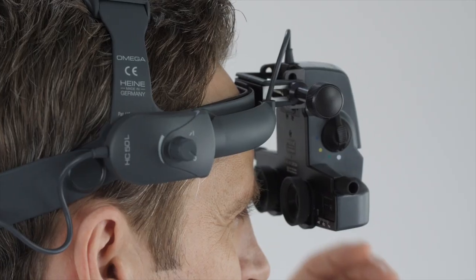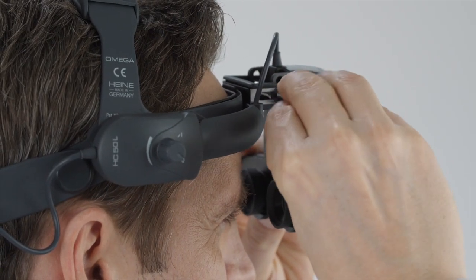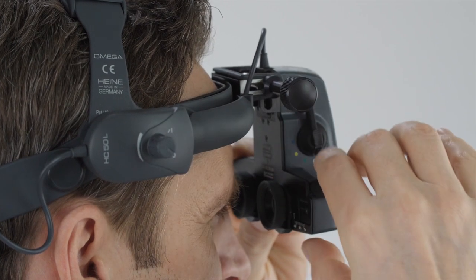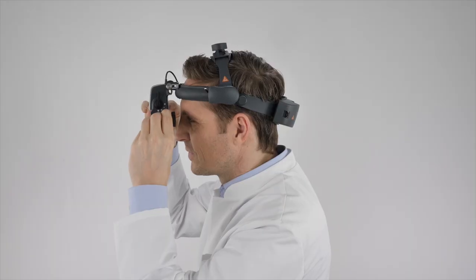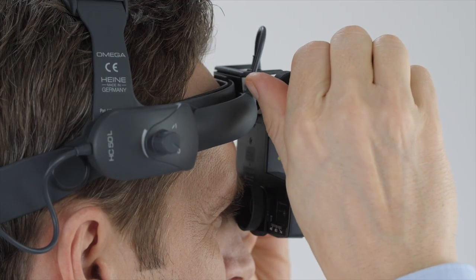Now loosen the adjustment knob so that the optics unit is freely adjustable. Guide the optics as close as possible to your eyes. Then secure the adjustment knob.